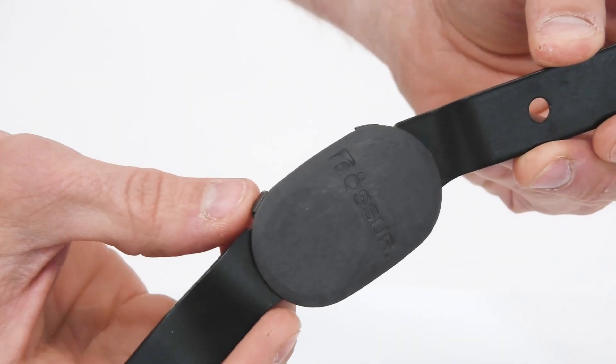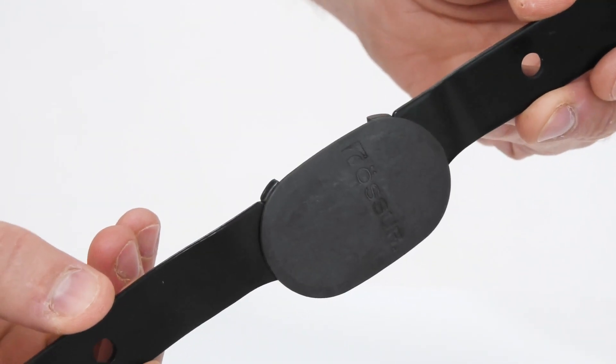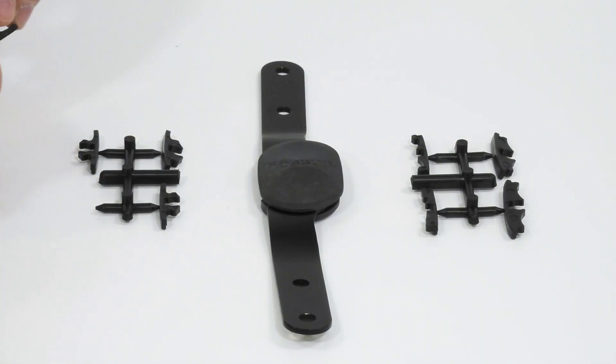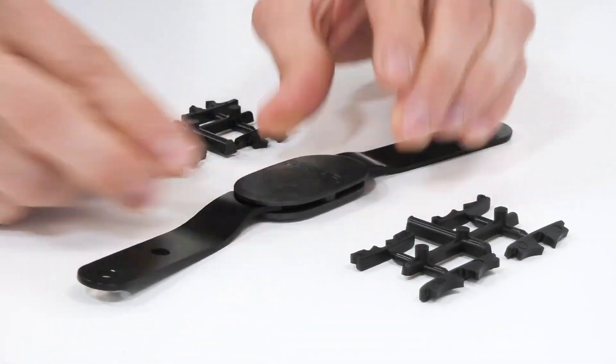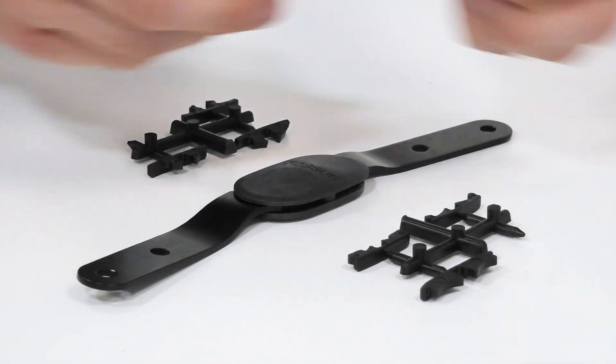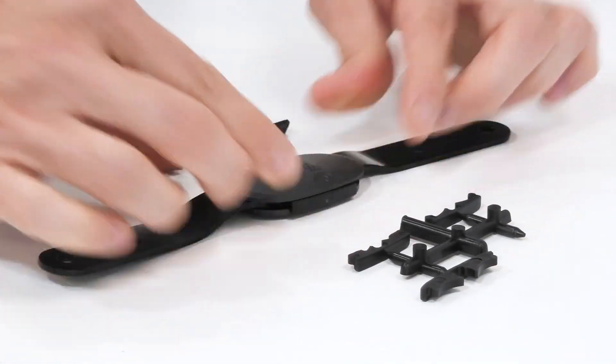The lugs you can see here, for example, are integrated zero degree extension stops. The additional flexion and extension stops are now tool-free, reducing the complexity for you to set up without the need for cheap single-use screwdrivers, further reducing time, waste, and materials.